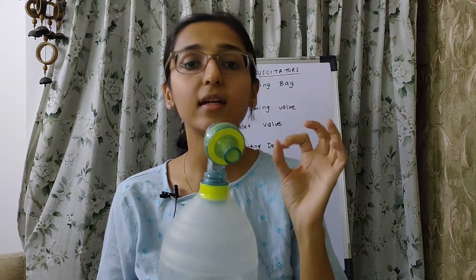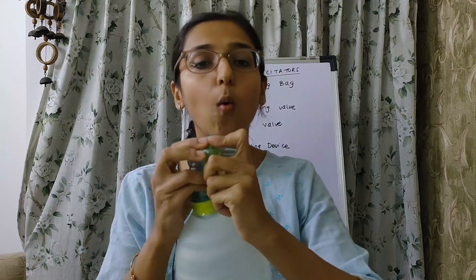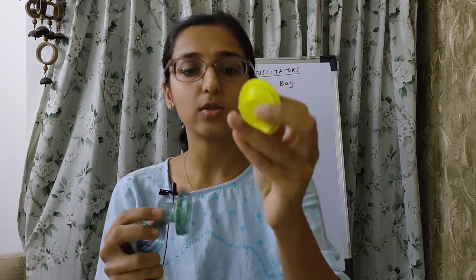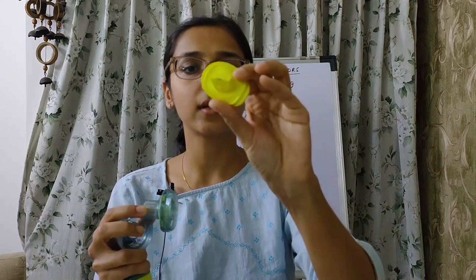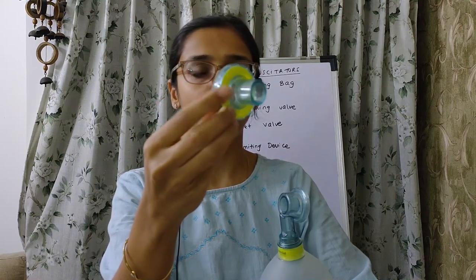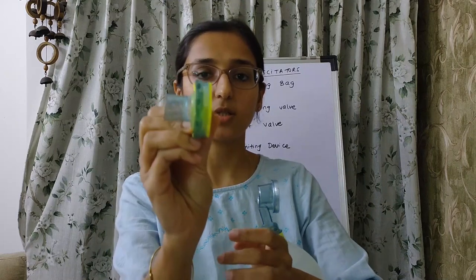Opening the patient port, we can see it has two components: a fish mouth valve and a disc membrane. The fish mouth valve is visible here. The disc membrane acts like a flap valve. Together, these form the fish mouth valve and disc membrane assembly within the T-shaped housing.